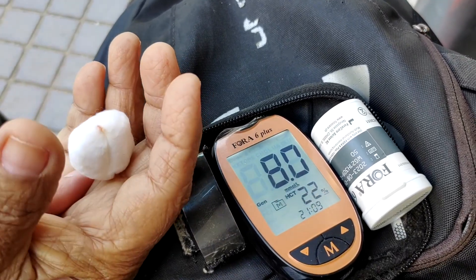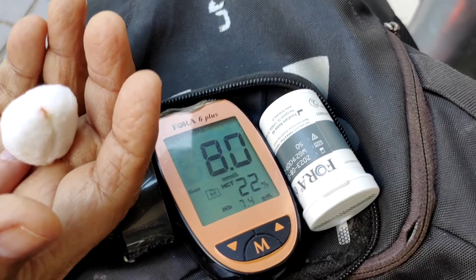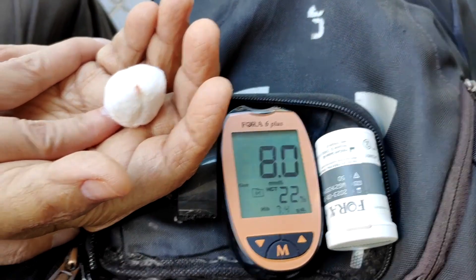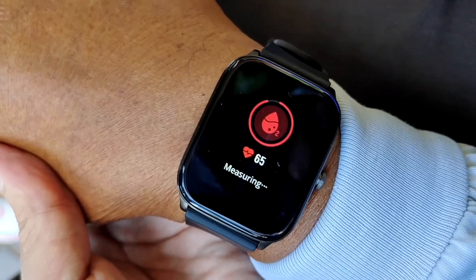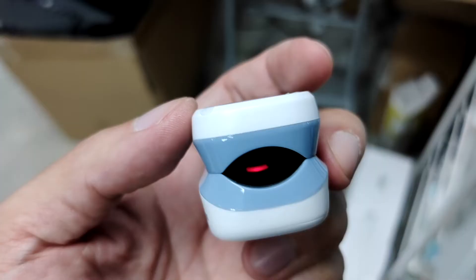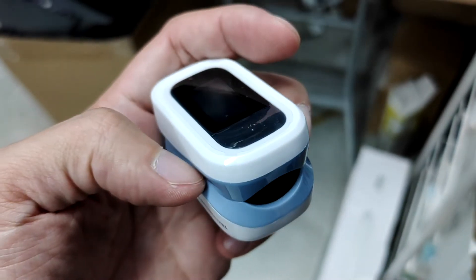How about people with low hemoglobin? I have a friend here who has a 7.4 hemoglobin level. In this part I'm going to test it with a person who has anemia. I'm going to test him with the smartwatch and it takes a few seconds — and it seems to read normal even though the person has low hemoglobin. The key word here is the absorption of the red light into the material.